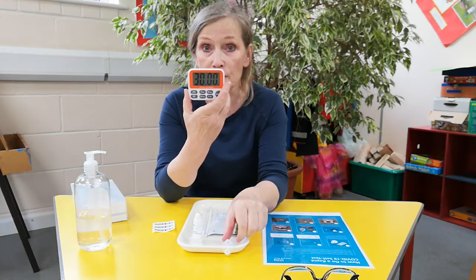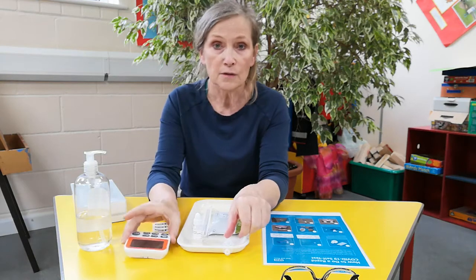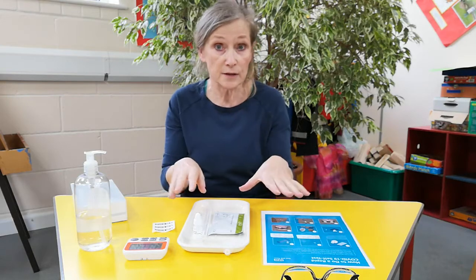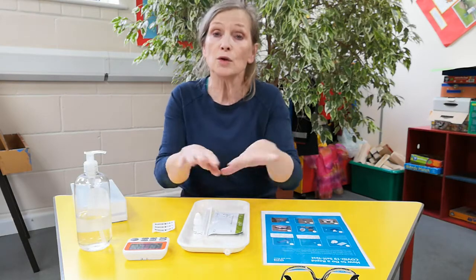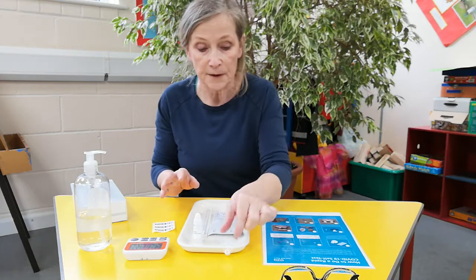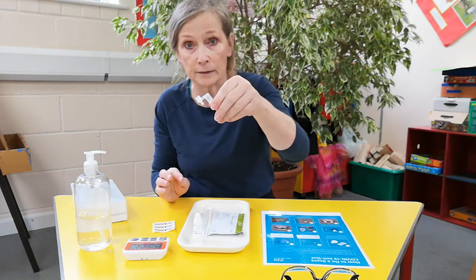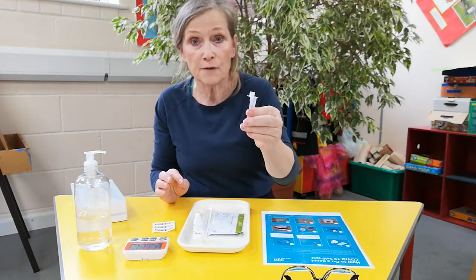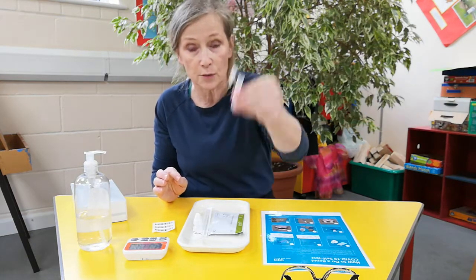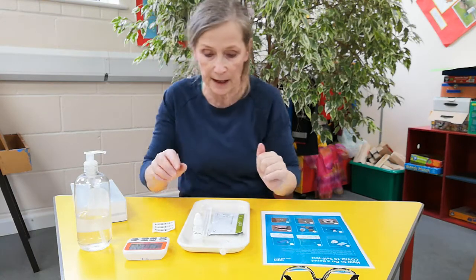You need to get yourself some sort of a timing device. Your phone will be fine, absolutely fine for it. So washing your hands, you'll lay your stuff out. You want a clean surface — you don't have to be neurotic, you don't have to bleach it, you just want a nice clean surface. You need somewhere where you can put this at an angle, because if you've got fluid in it and tip it upside down, the fluid will come out if it gets knocked over. So make sure you've got somewhere where you can just keep it up at an angle.